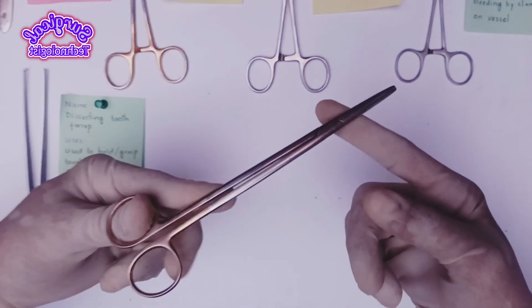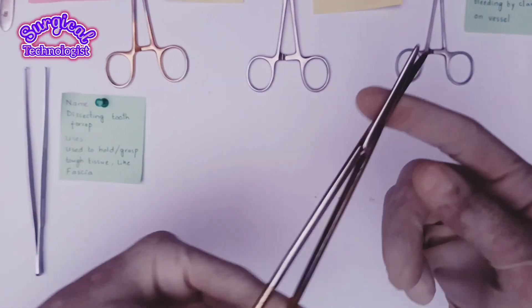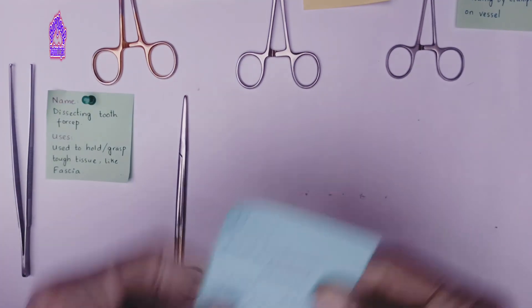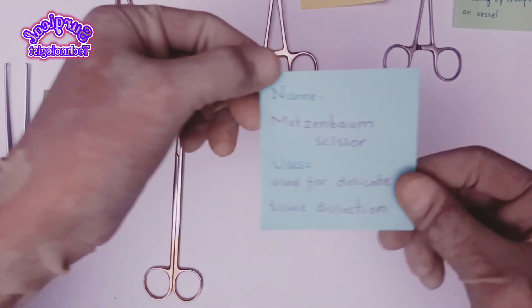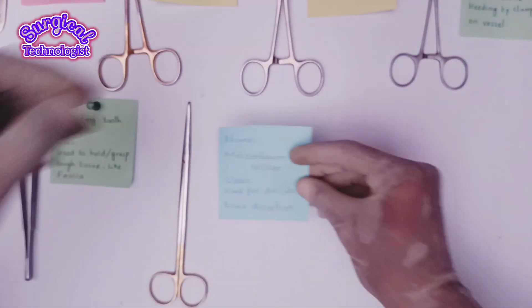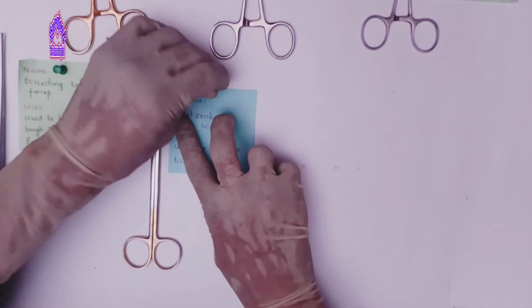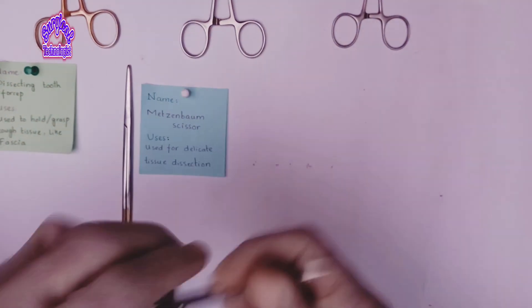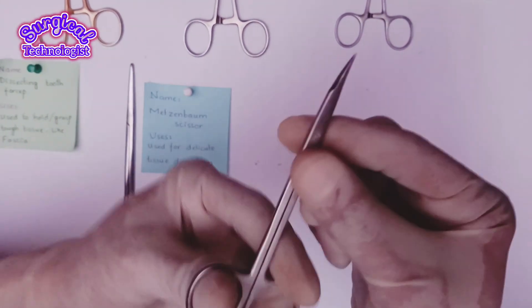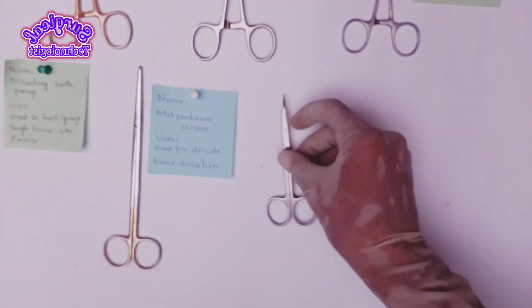Then we have the Metzenbaum scissors, used for delicate tissue dissection. Then this is the tenotomy scissor, used for cutting delicate tissue.